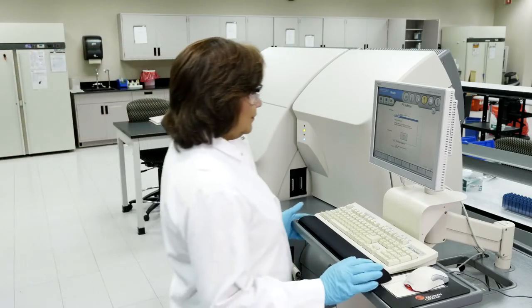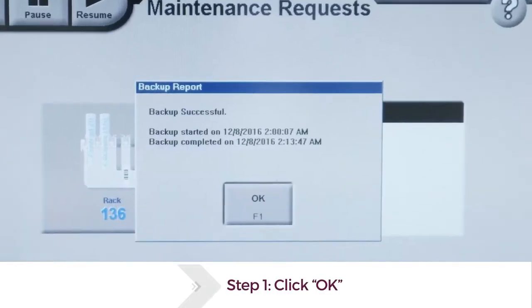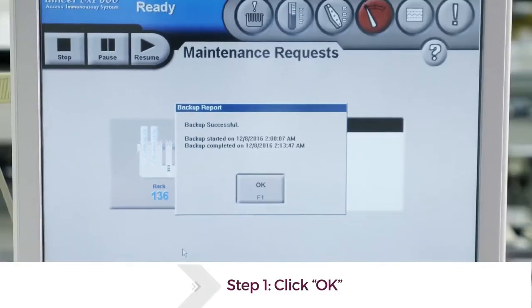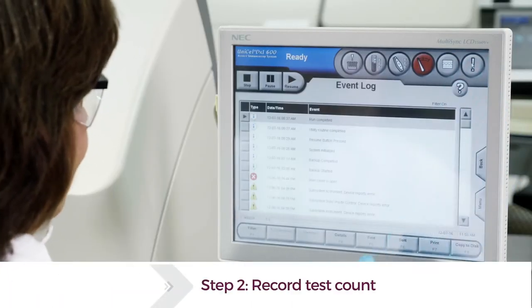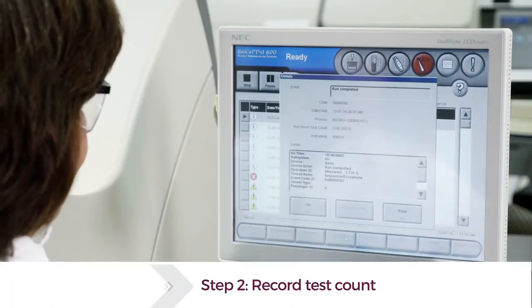First, operators use the instrument software to confirm that a user-defined scheduled system backup was successful. Next, operators record the test count to mark when the next maintenance interval is due.